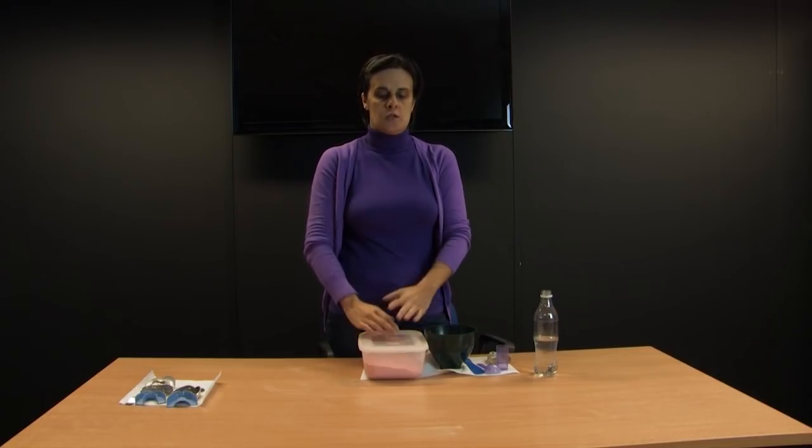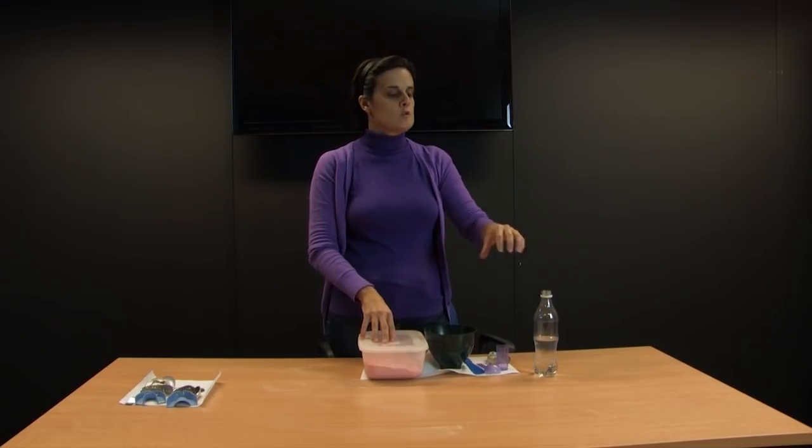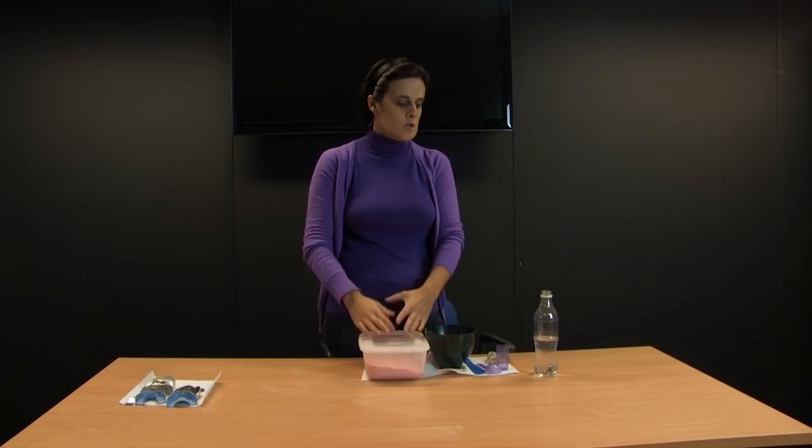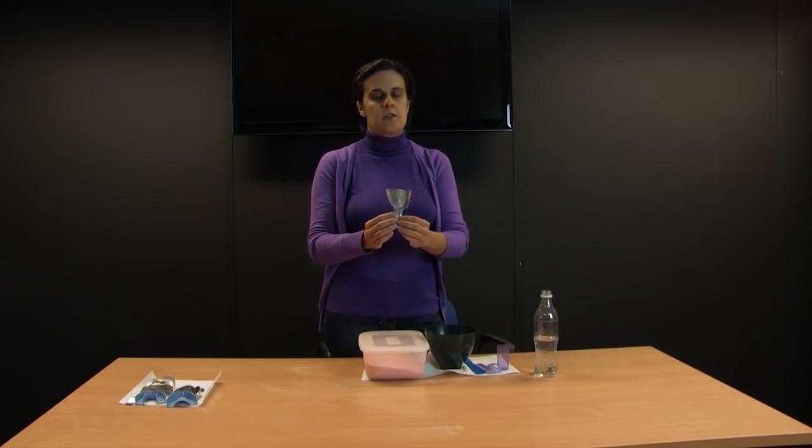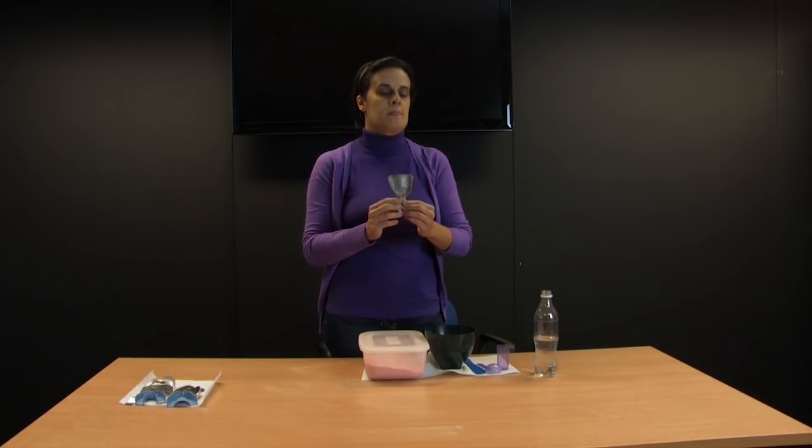The ratio for mixing alginate is 1 to 1 — one scoop of powder to one measure of water at room temperature. For most trays, although this is a generalization, two scoops of powder are enough, but in the exam and in the surgery you will have to judge how many scoops you need depending on the size of the tray. I have chosen this tray and I think two scoops of powder will be enough.